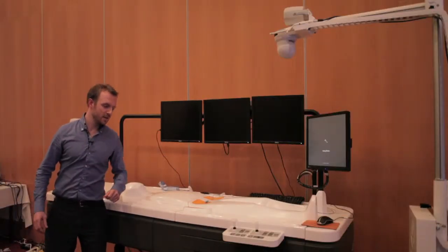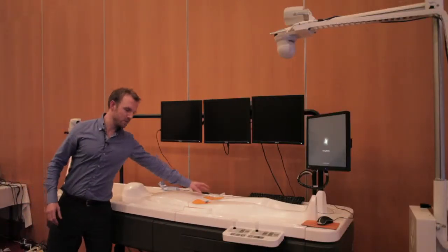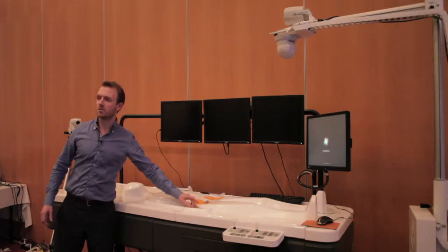So I'll just go through what we see in front of us. We see a full patient mannequin. We have a left femoral, a right femoral, and a transradial approach.